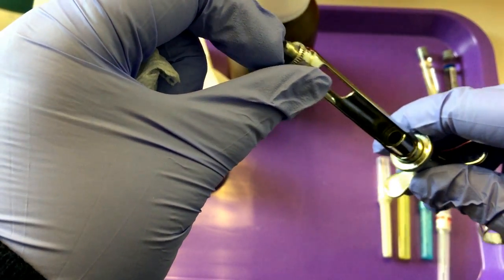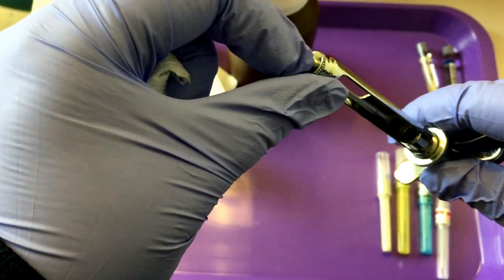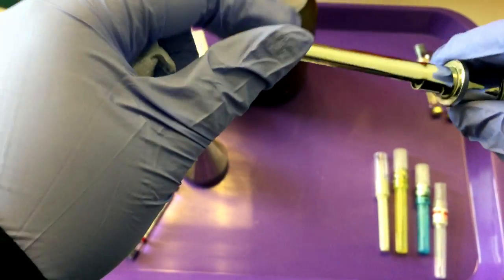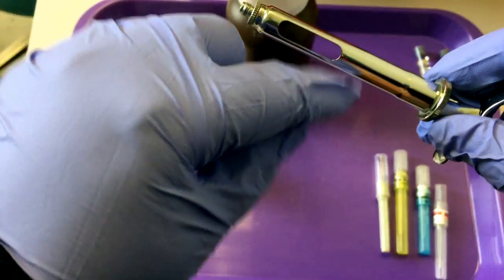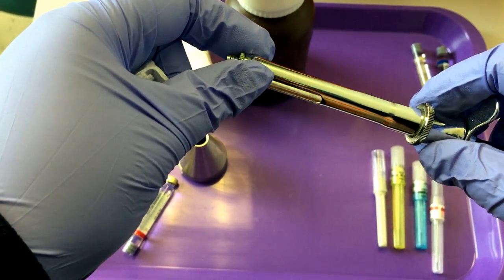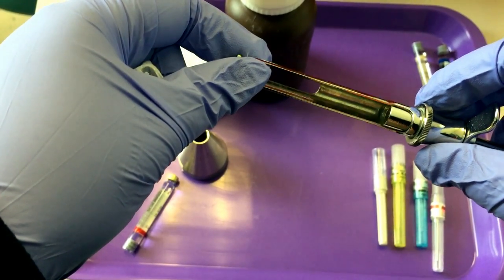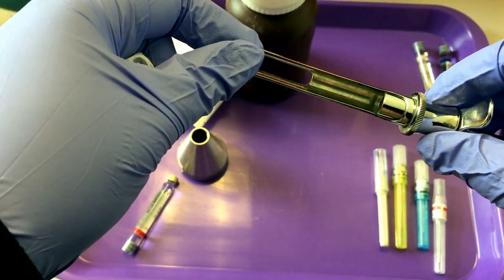You have the needle adapter end. This is where the needle is attached, and there's a window here so when the doctor is using it, they can draw back and see if they have inserted into a blood vessel.